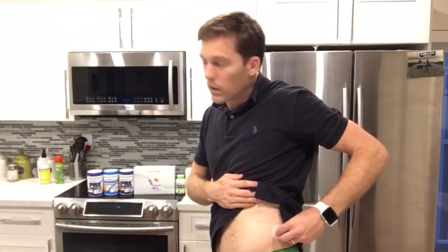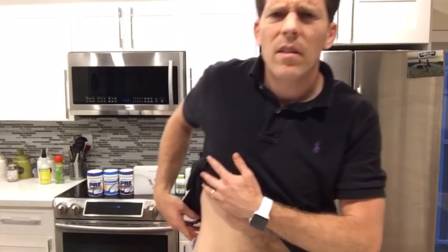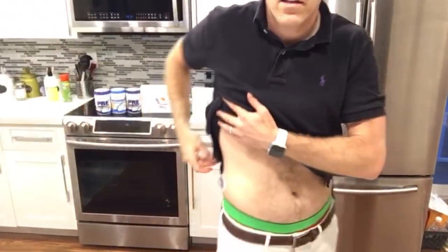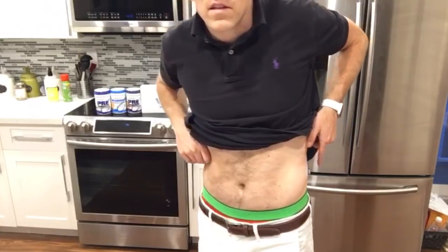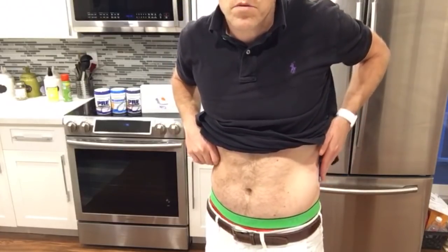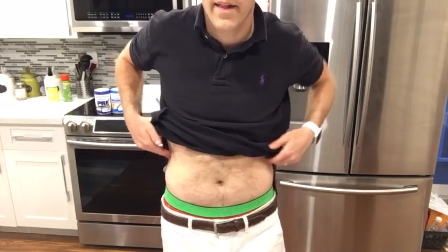That's probably arbitrary, but super comfortable and painless. I've got to say this thing is pretty sweet. I still have the G5 in over here — you can see how much bigger it is. G5 versus G6 — you can see that's pretty significant. I like it.